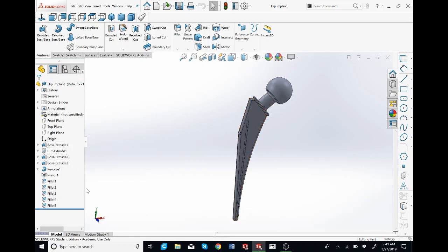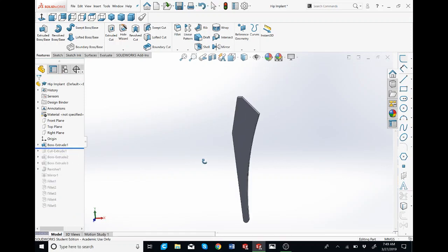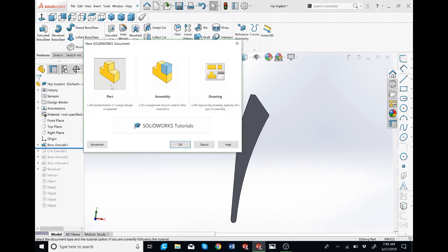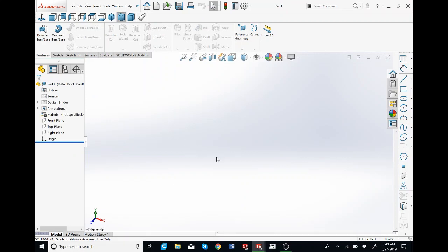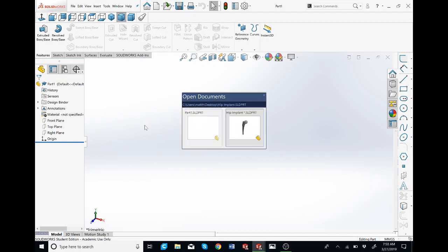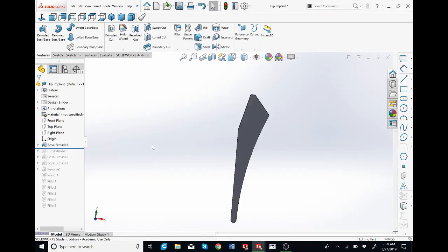As you can see on the left, I'm going to scroll this up to the first feature. And what we're going to do is actually go to this paper over here, click on part, click OK. All my measurements are going to be in millimeters. You can check that on the bottom right over here. You can change to IPS with inch-pound second. I'm going to be in MMGS millimeter-gram second. I'm going to switch over to my tab so I see what I've done. I'm just going to control tab to switch through files.